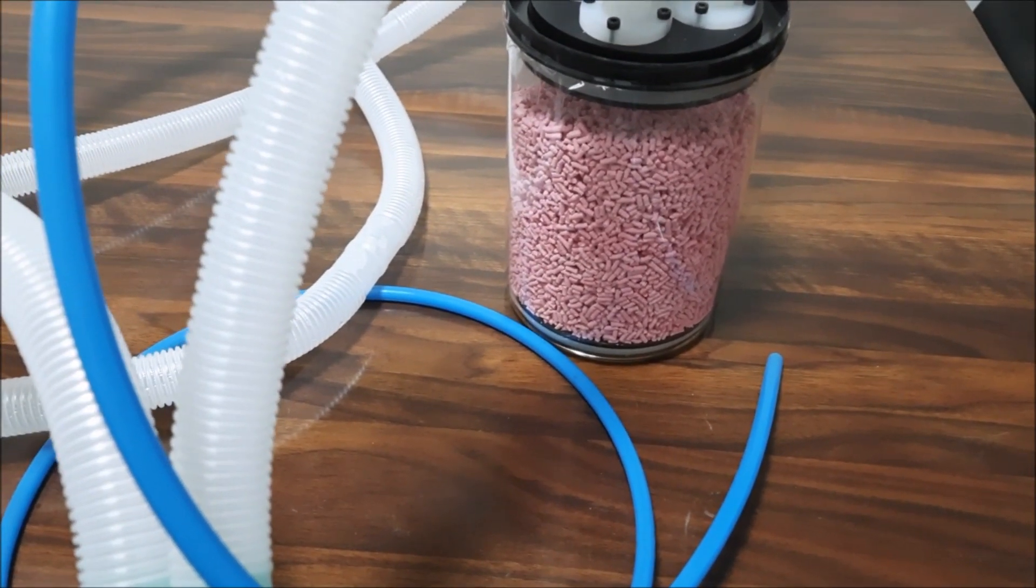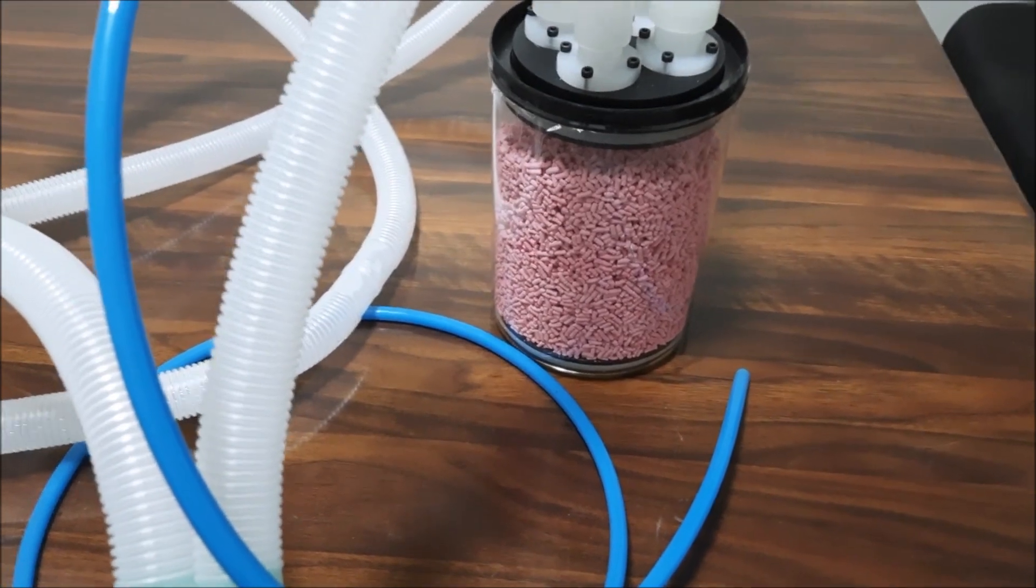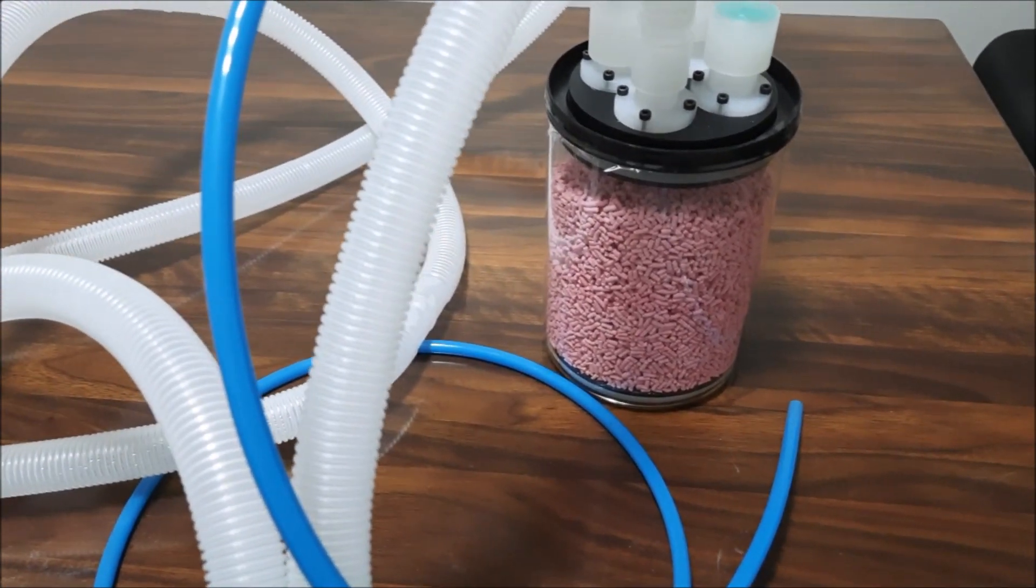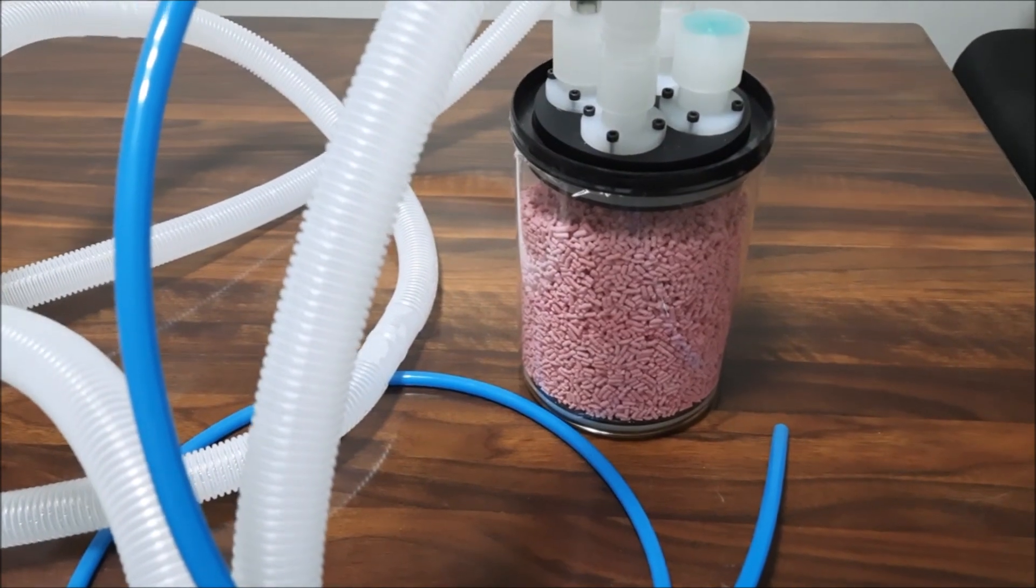The agent that we have used for carbon dioxide absorption is available for 1300 rupees per 5 kg and it will last for 2 days for a single person.